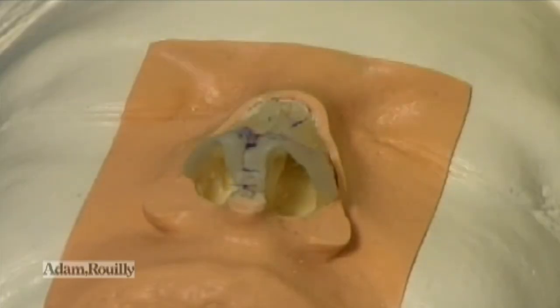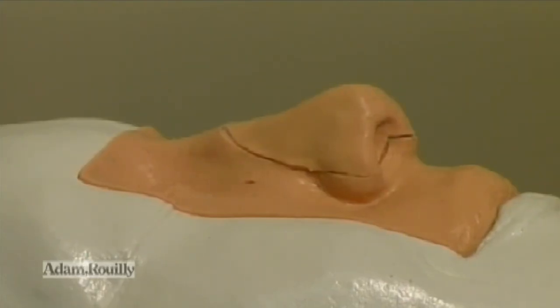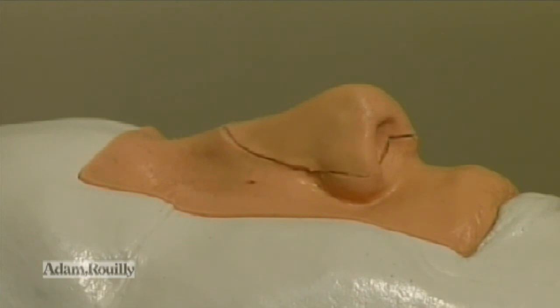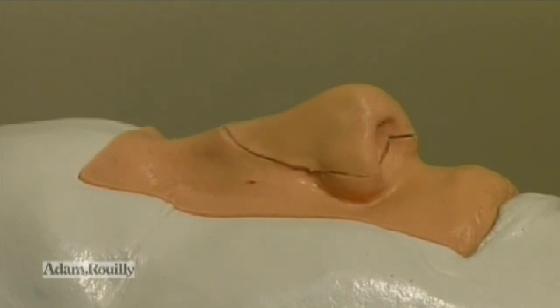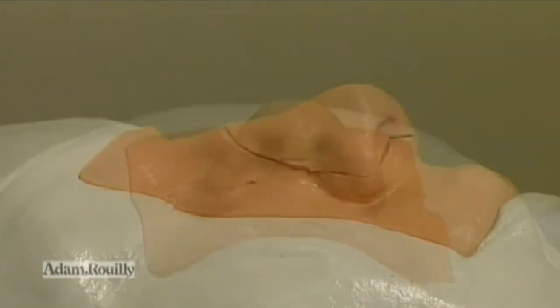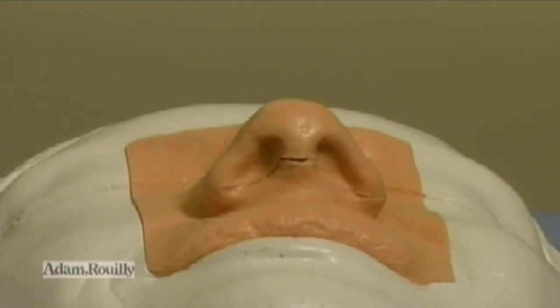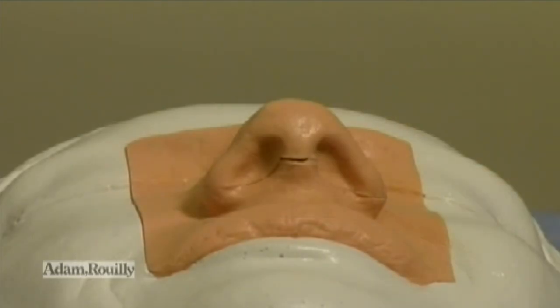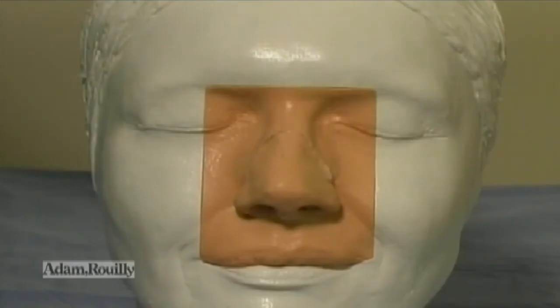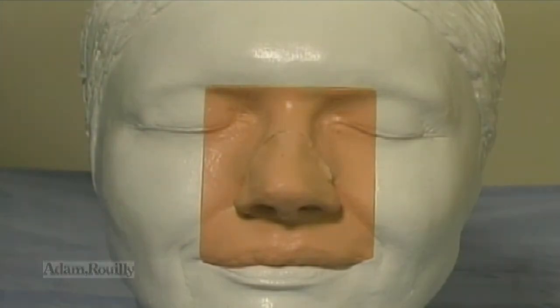It must be said that the rhinoplasty model is not a substitute for supervised surgical training in the operating room with an experienced mentor, but it is felt to play a useful role in providing an opportunity to learn and practice rhinoplasty skills through simulated surgery in an unhurried environment outside the operating room.